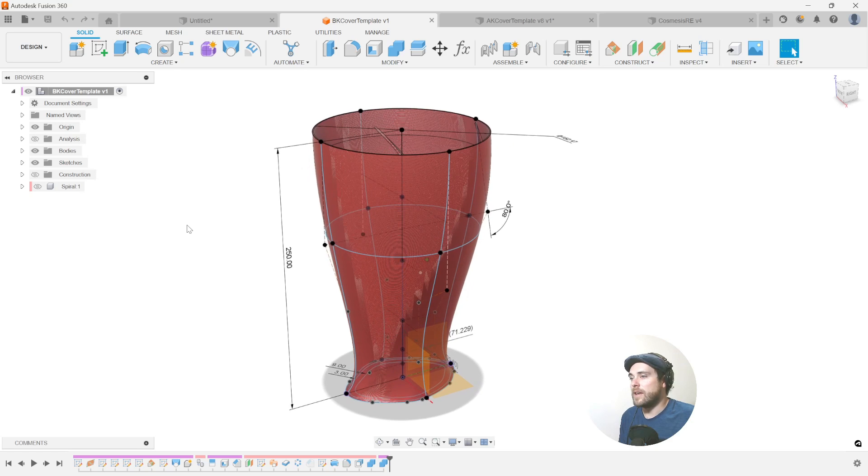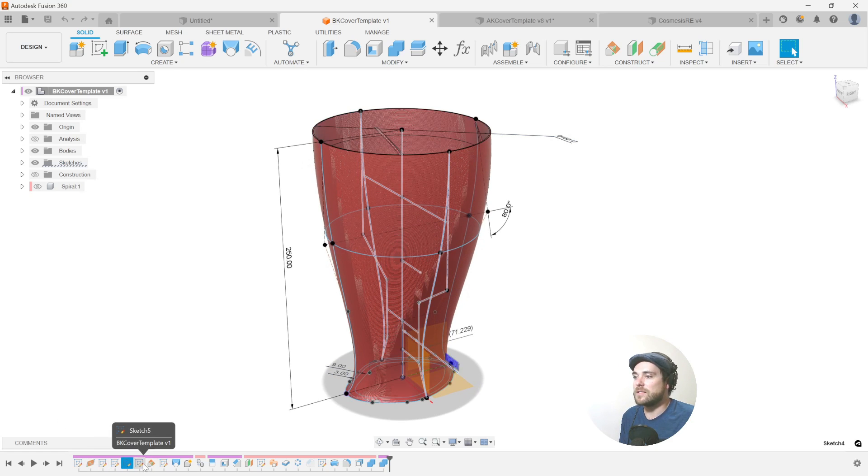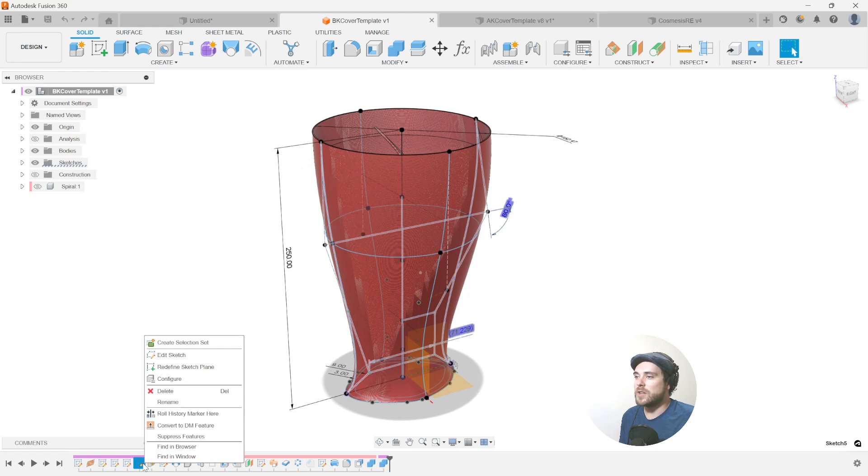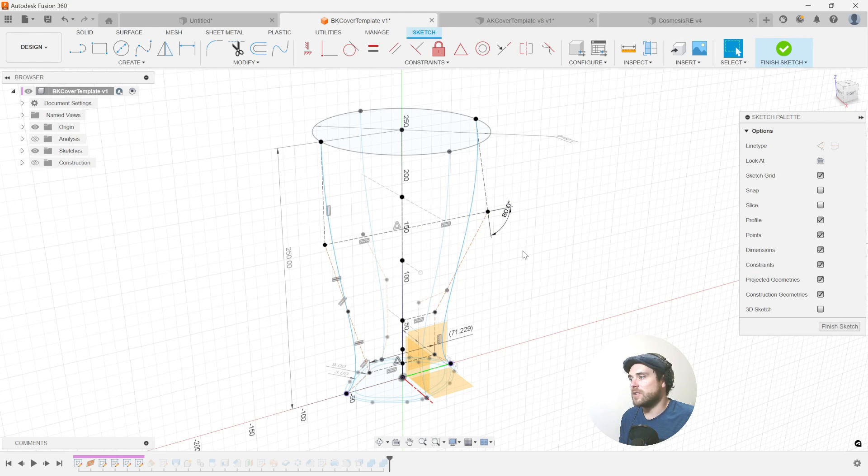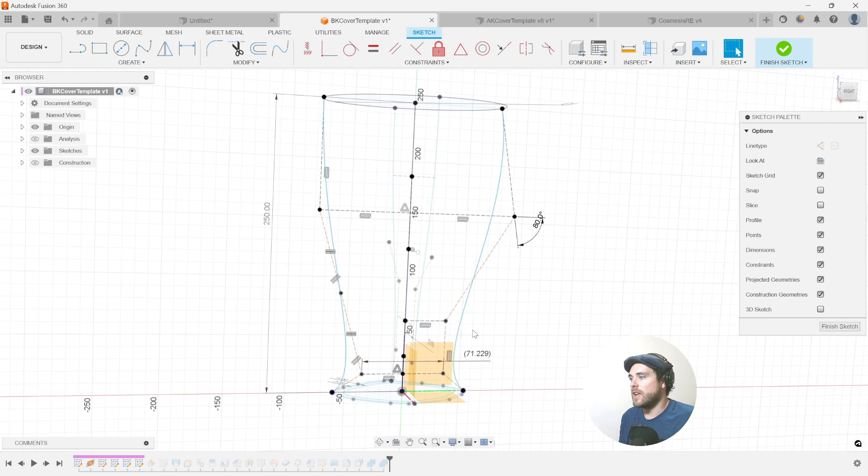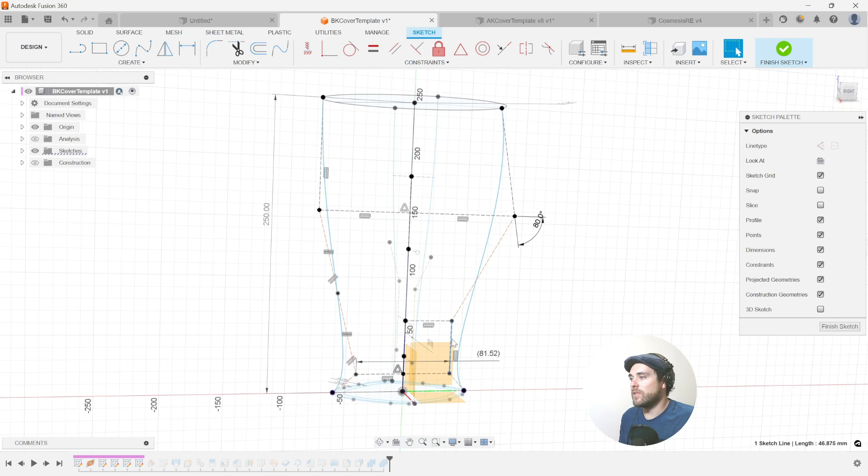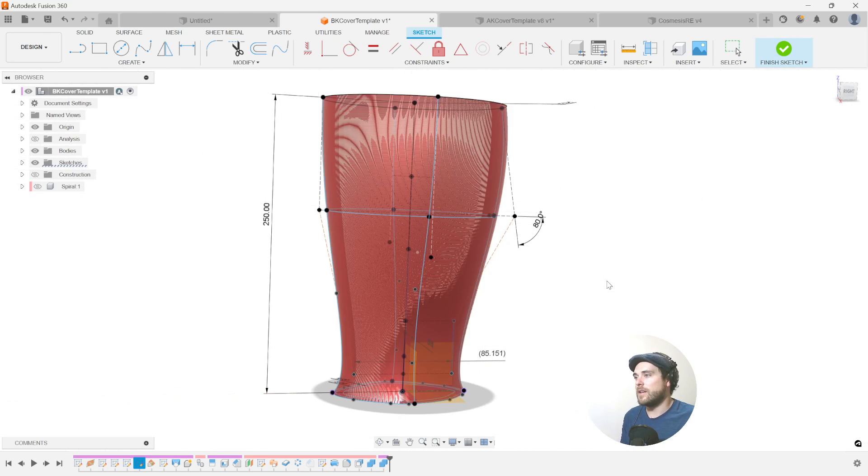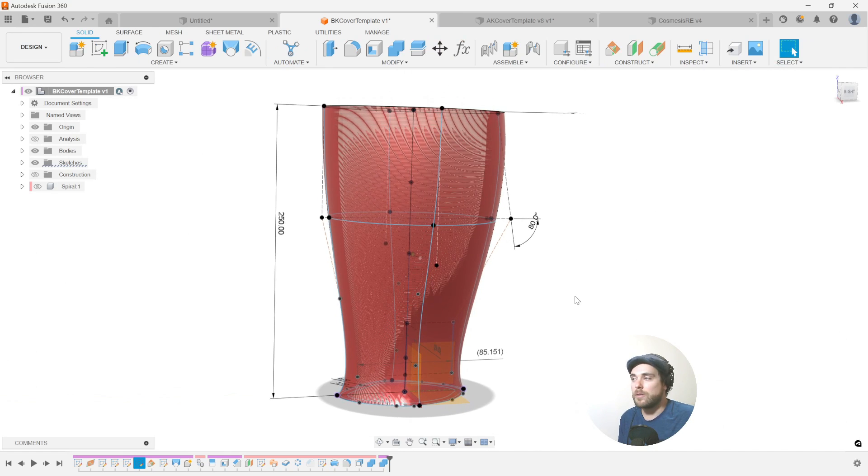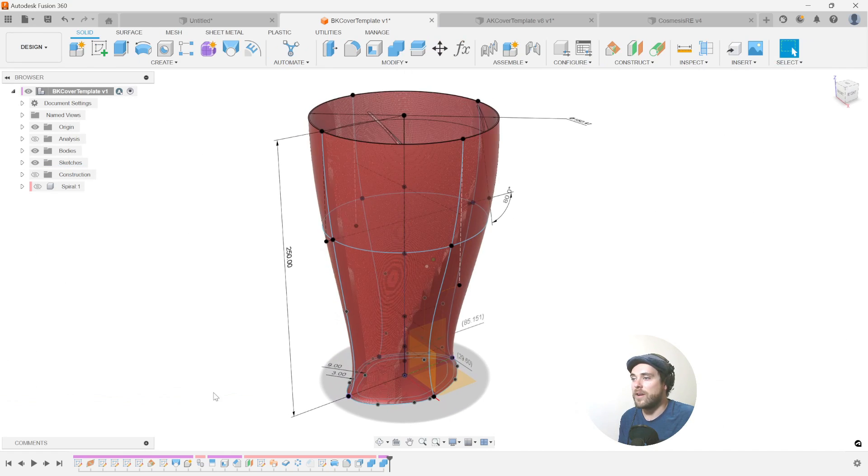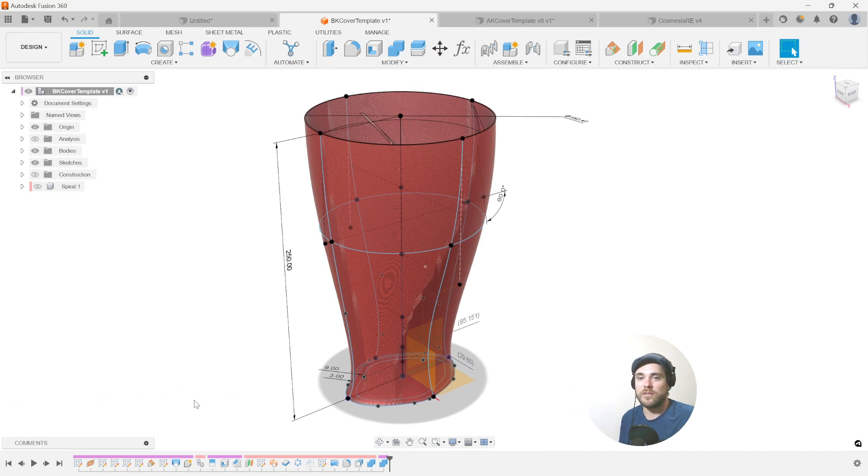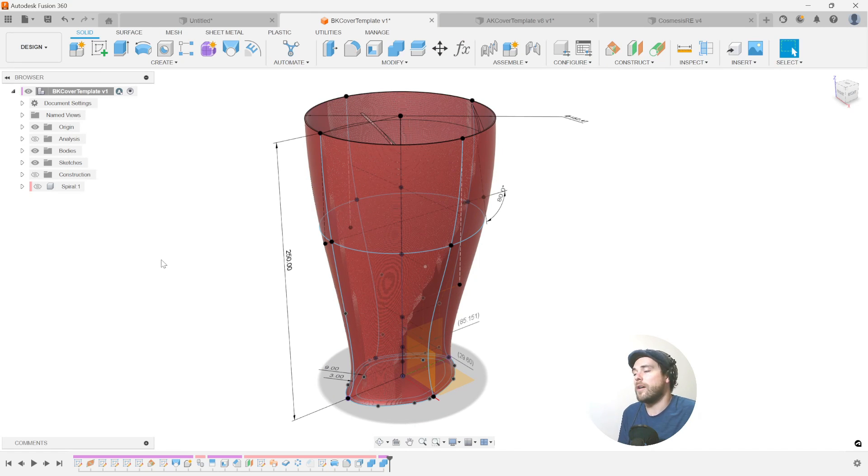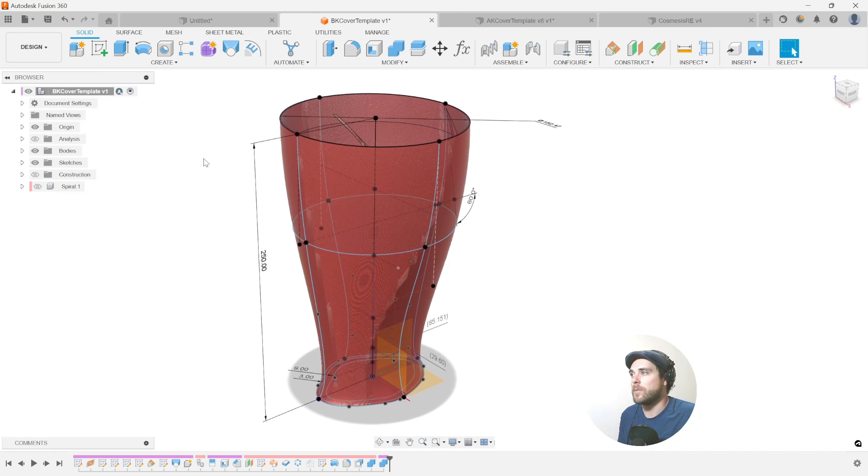We want to be able to quickly change this per patient by modifying key dimensions. Previously, what we had to do is actually go back into the features inside our history timeline, find the sketch we wanted to work on, hit edit sketch, go into this sketch and change some of the values and move things around and then hit finish sketch and watch it update again. Now, although this can work, it is rather cumbersome and it requires a decent knowledge of how the file was built and structured, making the process less repeatable for new users who haven't actually built the file or used it before.